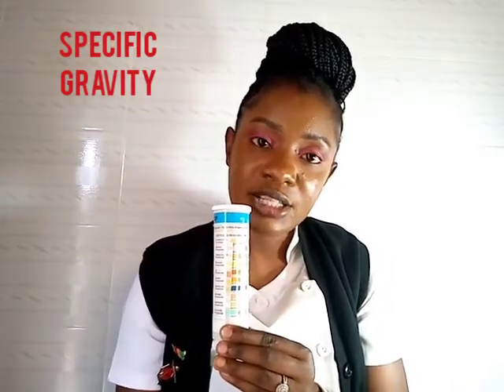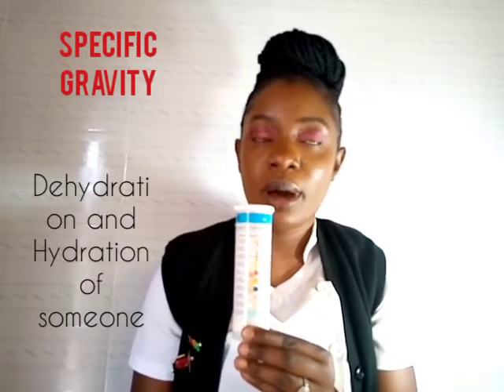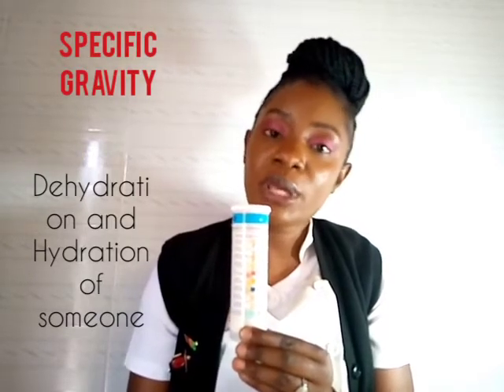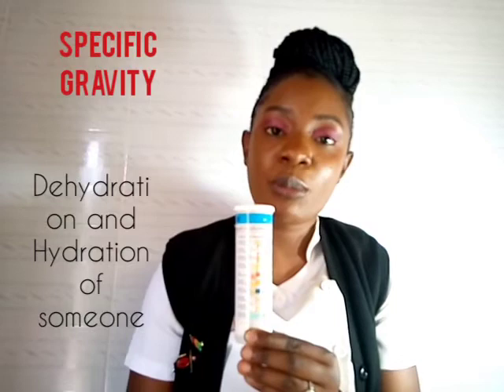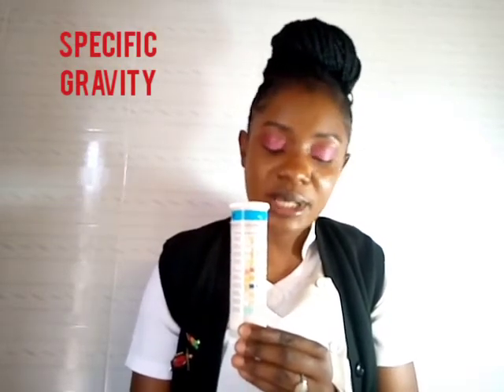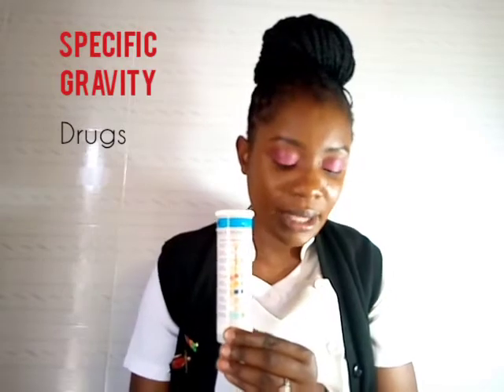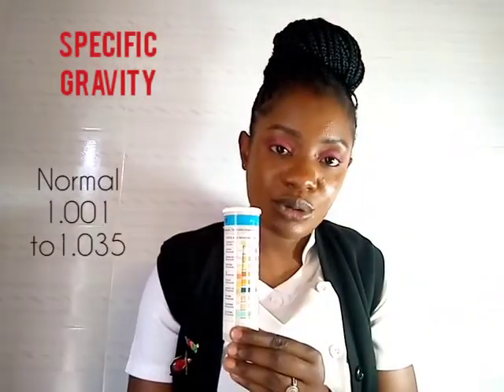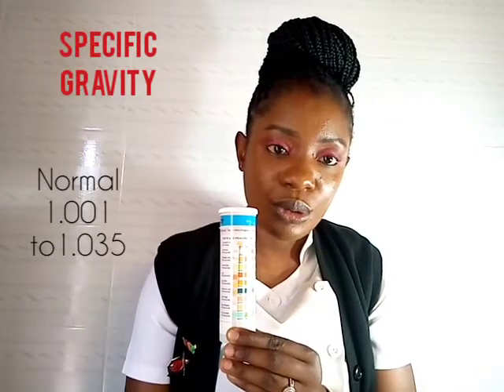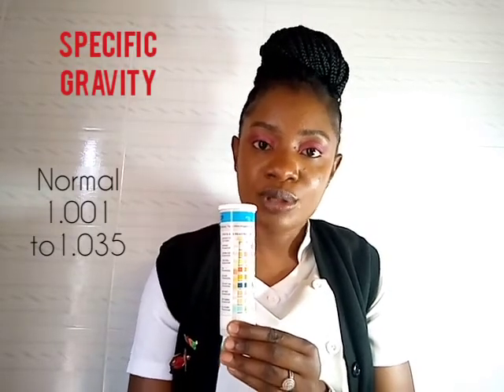Specific gravity — you check it after 45 seconds. This can indicate dehydration or hydration. If you are hydrated, your urine will be well diluted, pale yellow in color. If you are dehydrated, your urine will be more concentrated. The normal range for specific gravity of urine is 1.001 to 1.035. Some drugs like TB drugs can also change urine color.